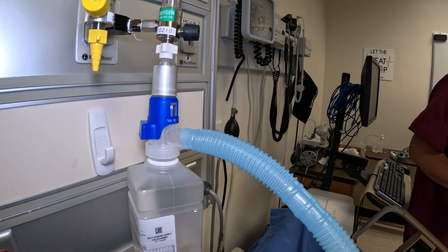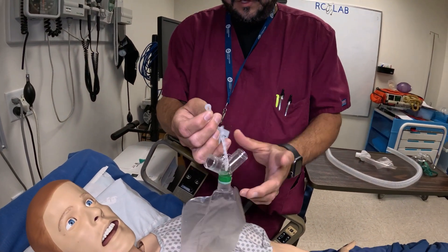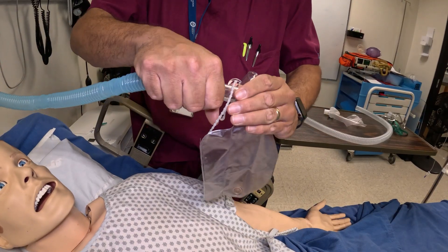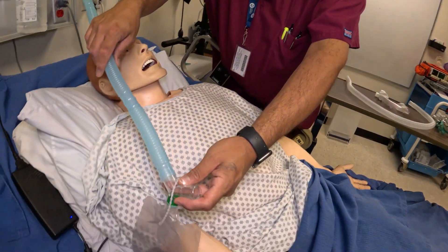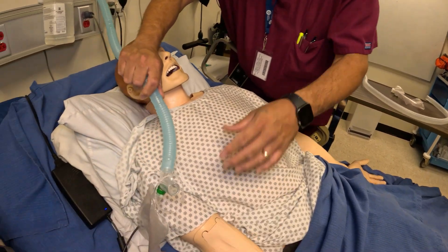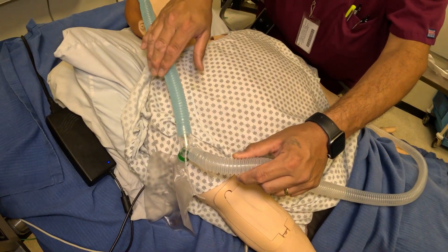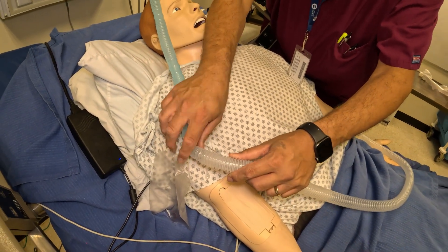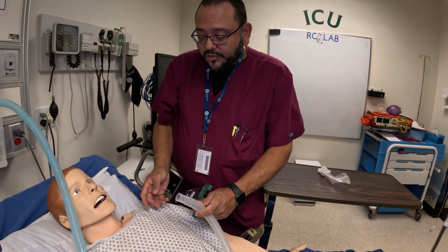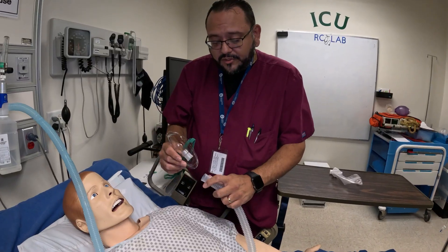Now that we have that hooked up, we'll connect the tubing. I have my drain bag with the clip, which attaches to the bed frame or rail. Be mindful that when they move the patient you don't want it to tilt and spill, and you want it to maintain its downward angle so condensation drains into the bag. The tubing goes at such an angle that it drains right into the bag, and you should see aerosol coming out of the end if it's running correctly. This can connect to a trach collar, a tee piece, or an aerosol mask.